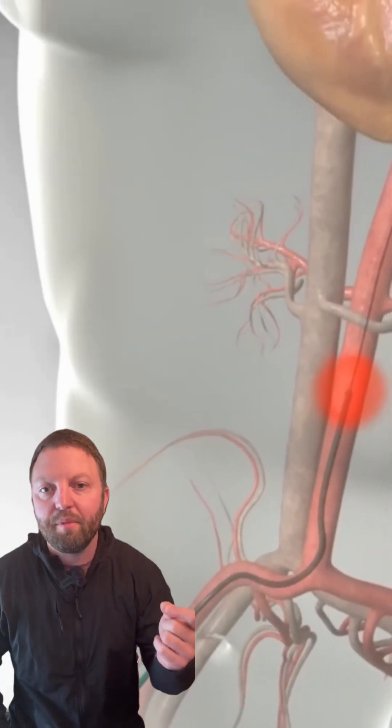The cardiologist will enter the patient through the femoral artery. They'll travel up the femoral artery into the common iliacs and up the descending aorta.